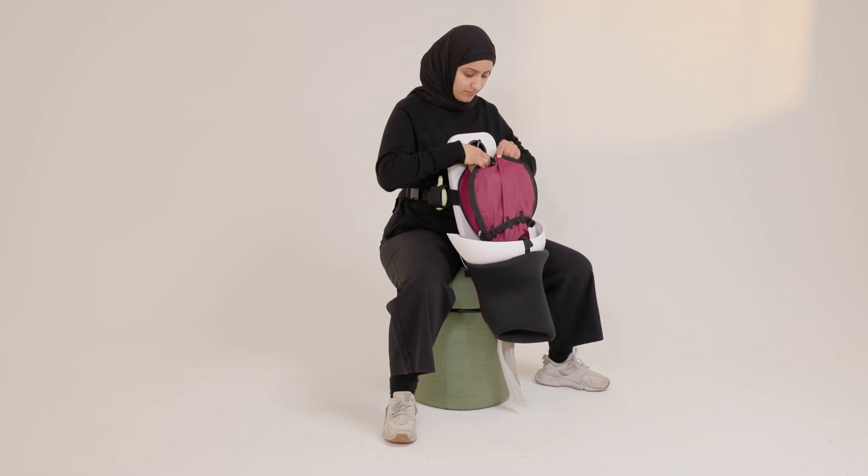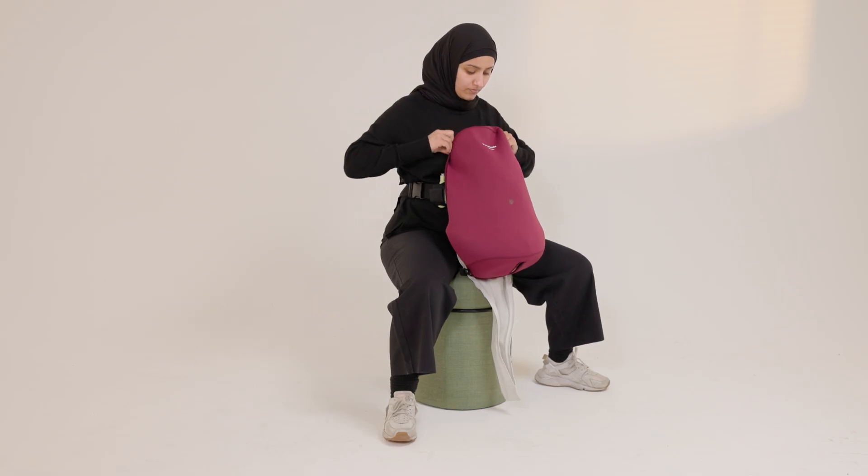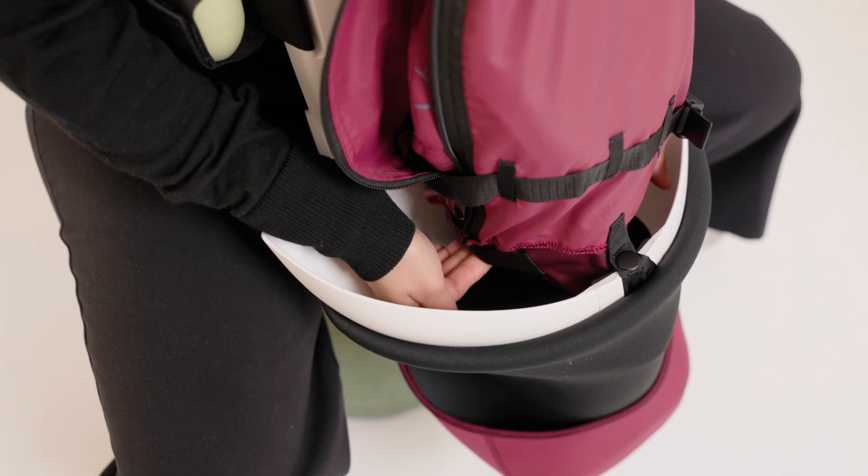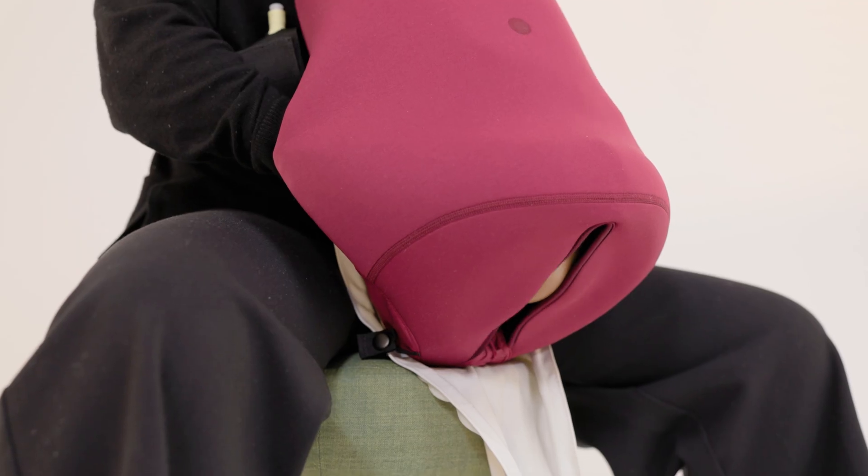Close the uterus using the button on top, leave the sides open, and pull the stomach skin back to cover the skeleton. Place your hands in the uterus and hold Neonataly so that the head does not show in the birth opening.